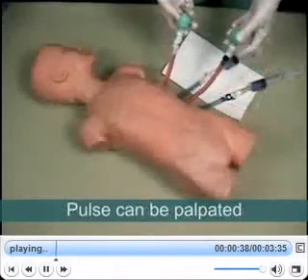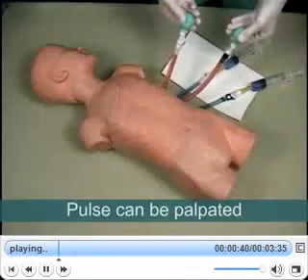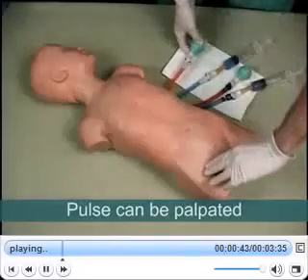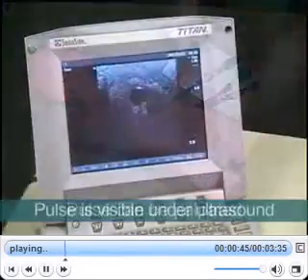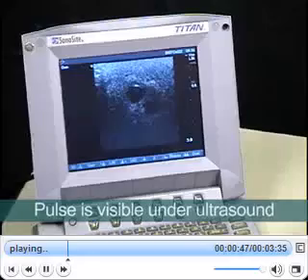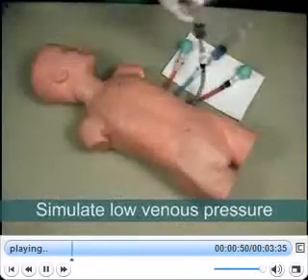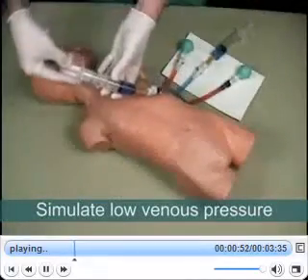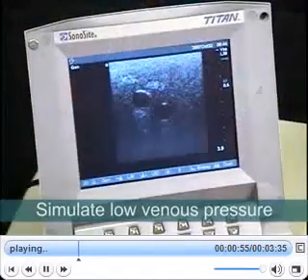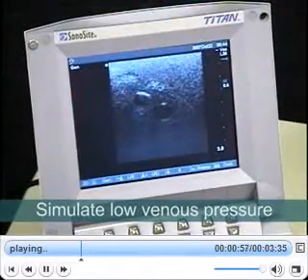Vascular Access Child also includes two arterial pulse bulbs, which provide excellent simulations of the arterial pulse when palpated and also when the pulsating artery is viewed under ultrasound. Both the neck and femoral tissues are equipped with a syringe so that venous pressure can be adjusted, allowing the user to simulate low blood pressure complications.